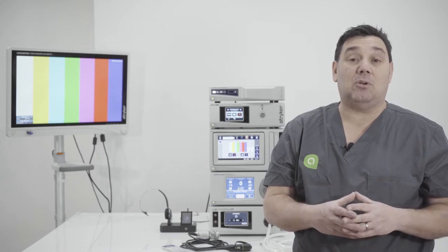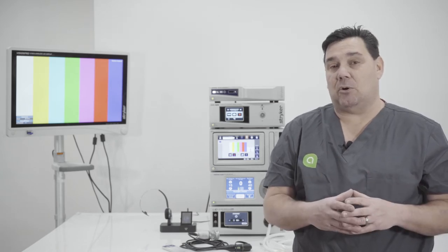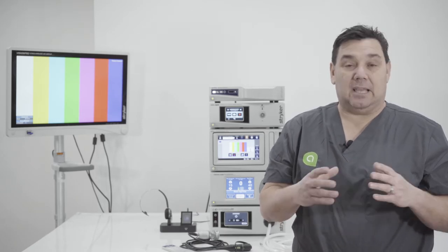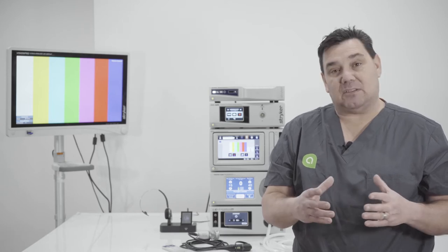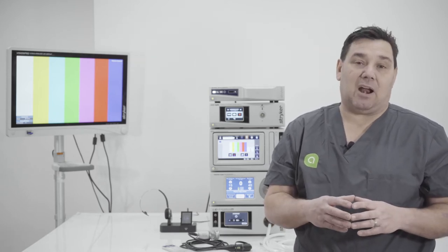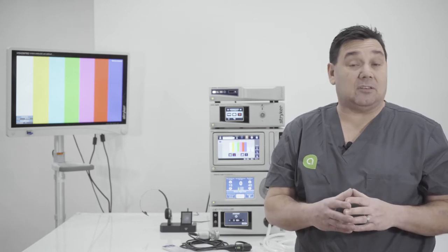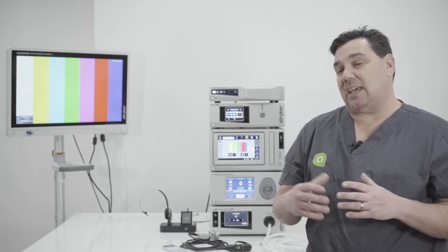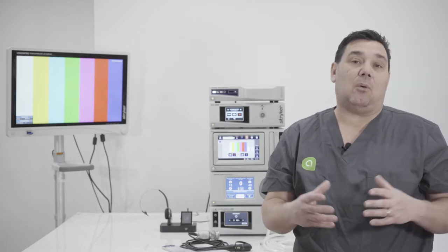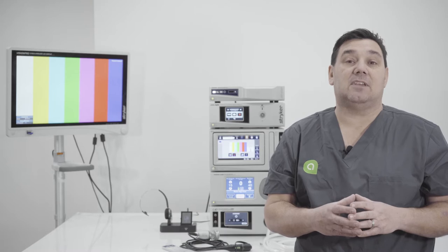The other nice feature is the picture-in-picture mode, or dual channel mode, where it can capture two independent video source inputs. In the operating room environment you obviously have your endo camera — in this case set up with the 1588 — but you also have other video sources that you bring in and out of an operating room.